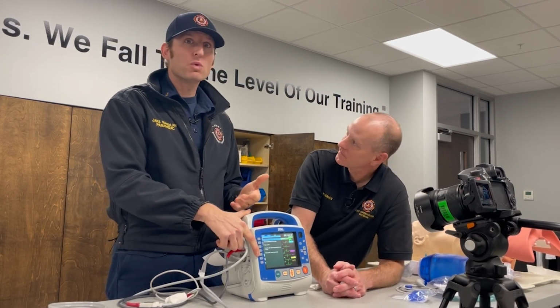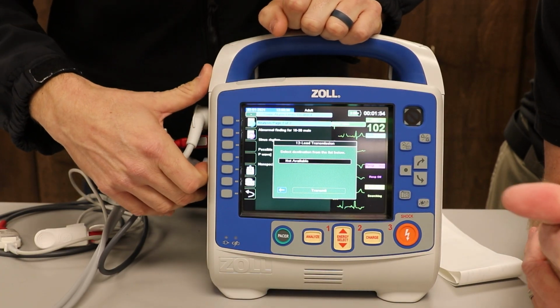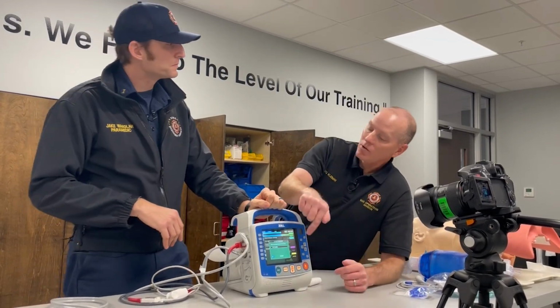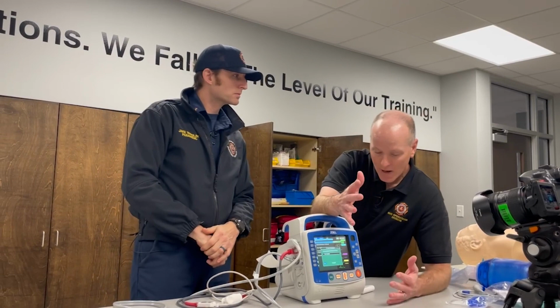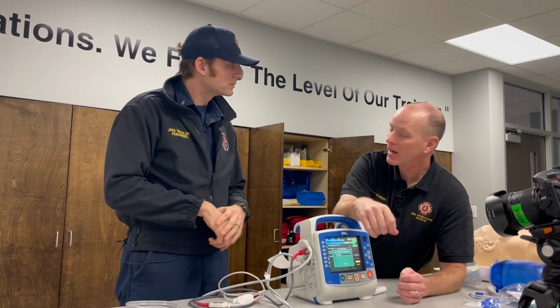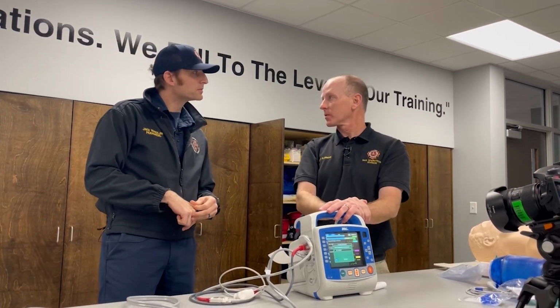Gotcha. Select the one that you want. Once you select it, it's going to give you the option to actually transmit it, based off of your time and the patient's last name. Correct. And all you got to do at that point is transmit. Yeah, I like yours. Yours is a little KISS principle. Yep. You can go the opposite way, but there's a lot more steps, and you're having to then turn around and say, what was the time I kept the patient on the monitor? Correct. Yeah. So nothing wrong with two ways. I like your way. I like the KISS principles. So let's do KISS.